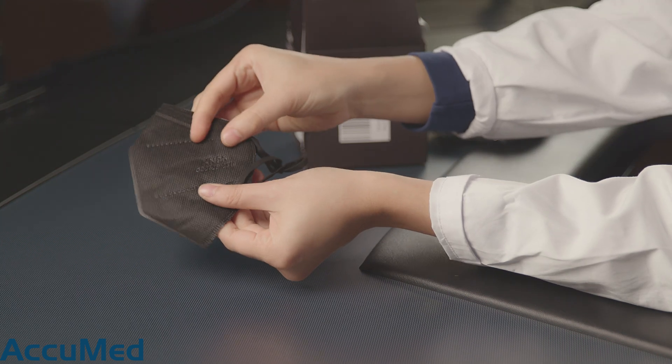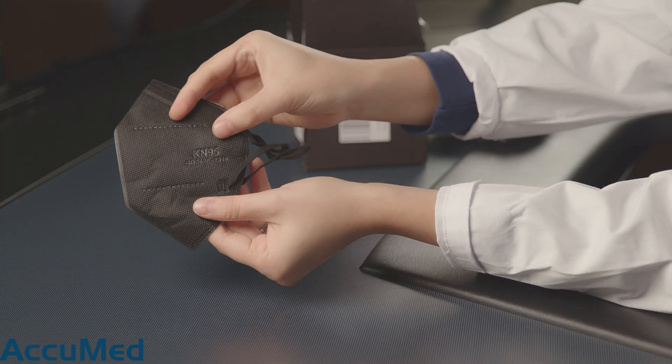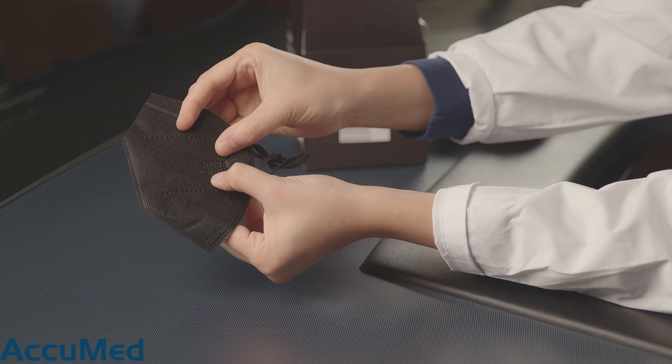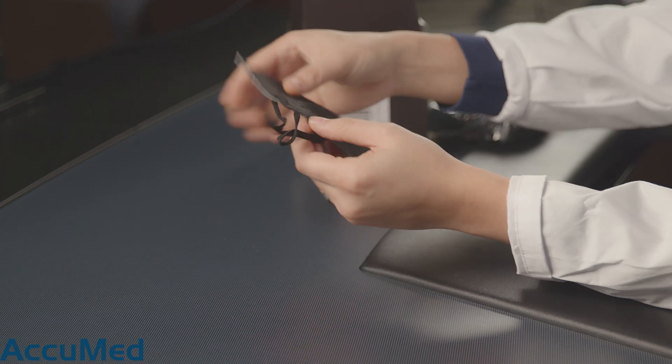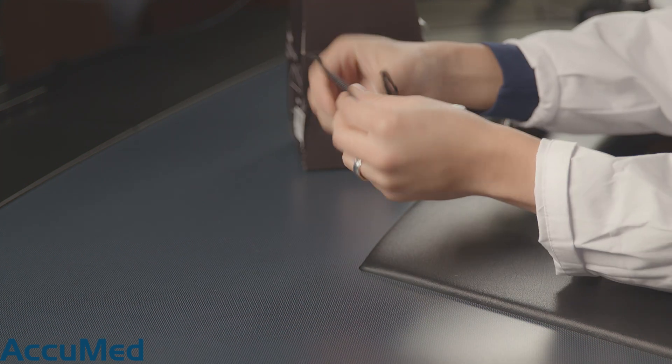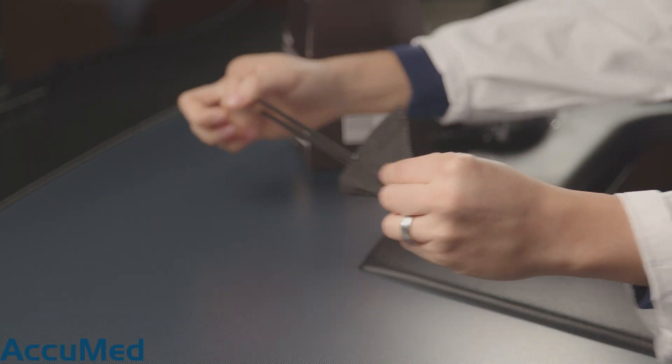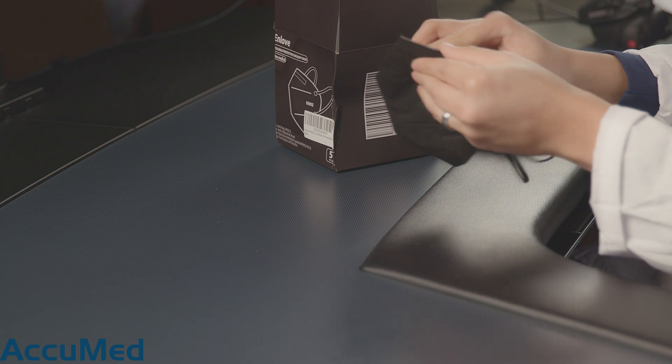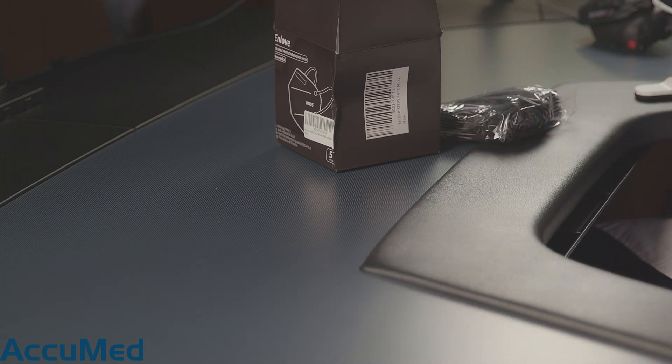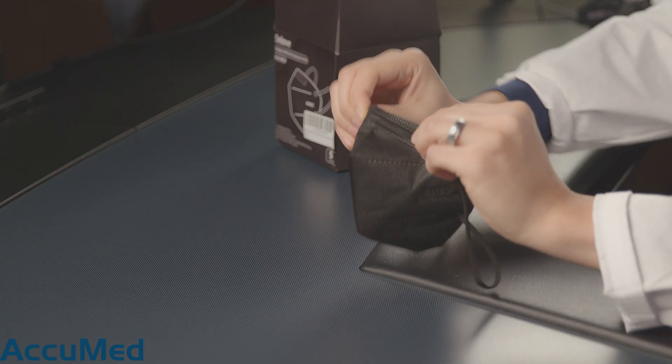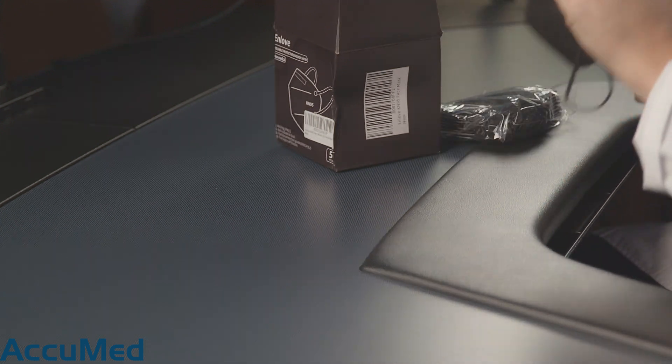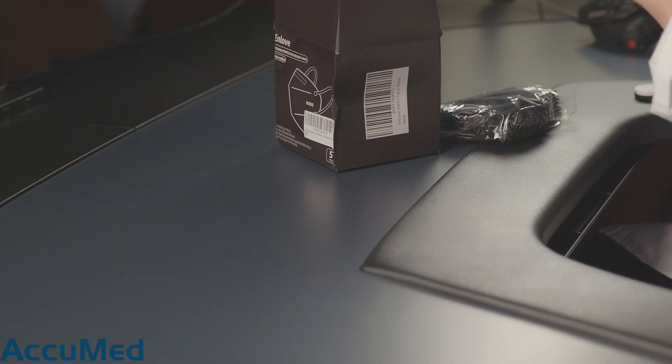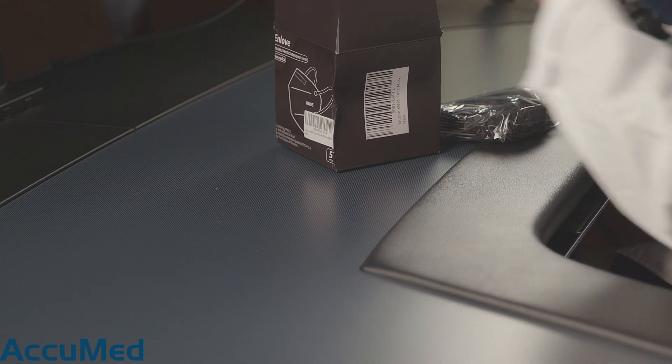And as you can see it does have the KN95 GB2626 2019 on it. Gonna go ahead and test out the strap. Not bad at all. Nose wire. Seems a little bit flimsy but we won't really know until we try it on.